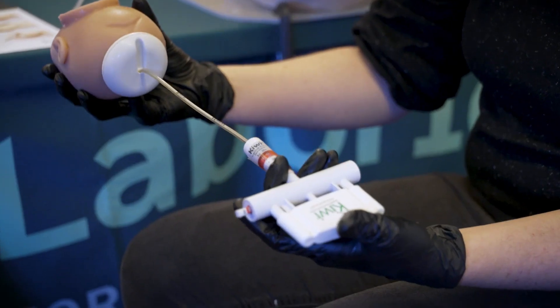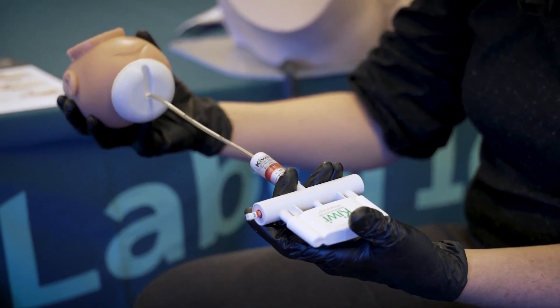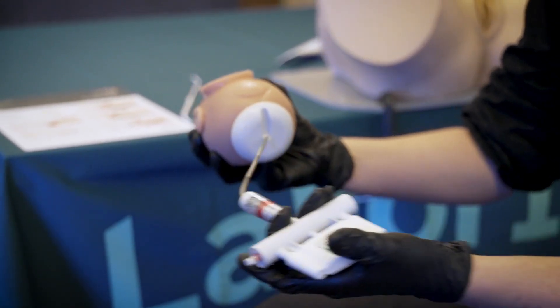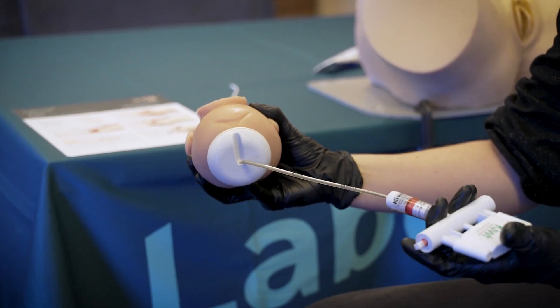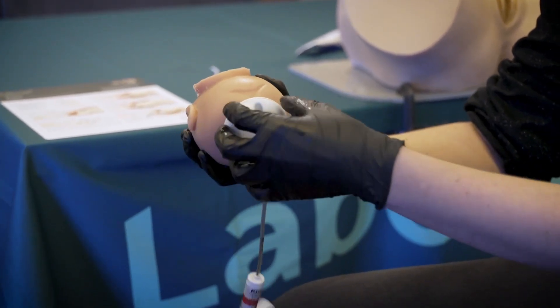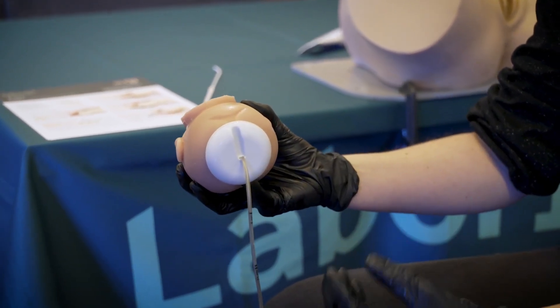It's also very important that when you initiate your traction and when you apply traction forces, you maintain a 90-degree angle between the cup and the stem of the Kiwi. If you start pulling with any side-to-side movement, up-and-down movement, or at an angle that's not 90 degrees, you'll get a force across the cup which would cause it to lift, slide, and pop off — which we're trying to avoid.